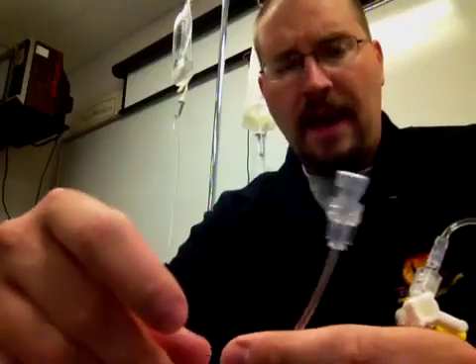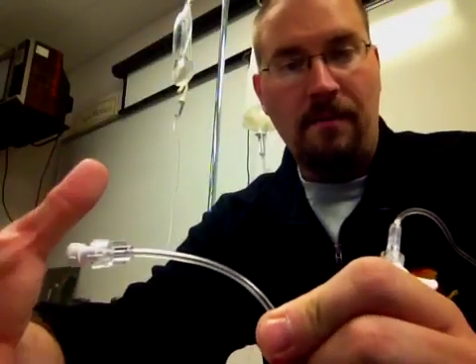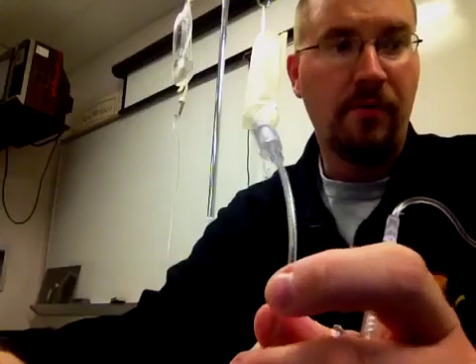What this does is this hooks into the distal monitoring end of whatever line we're looking at. Really, the circulatory system is nothing but gradients of pressures, different pressure gradients. That pressure, let's say I'm monitoring in an artery, as we go into systole, there's a certain pressure that's distributed throughout whatever system we're monitoring during both the systole and diastole. Those waves of pressure can travel through fluid.